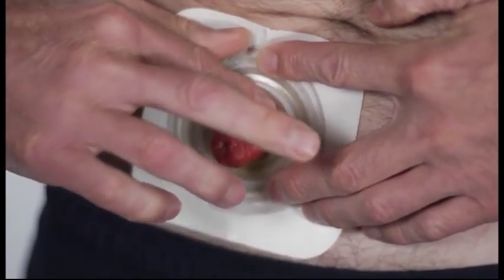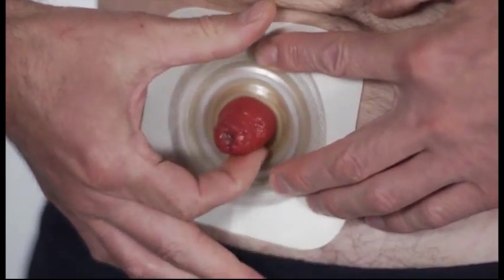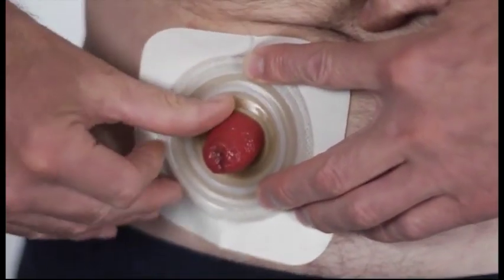Press the wafer into place and if necessary, readjust the rolled adhesive to create a gentle hug around your stoma.